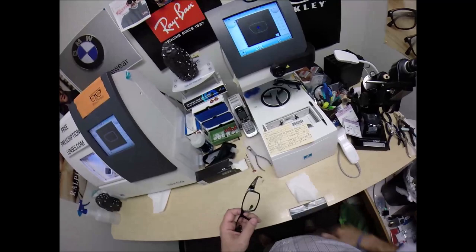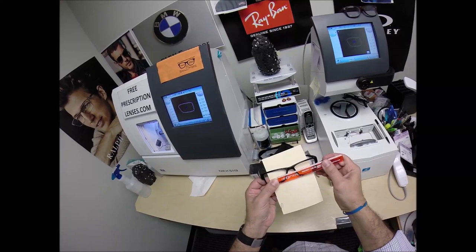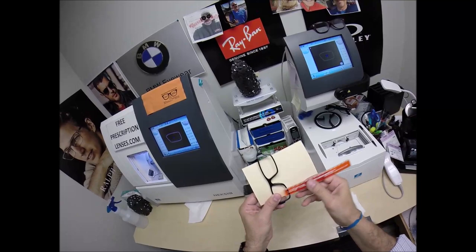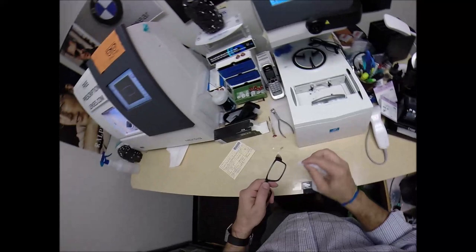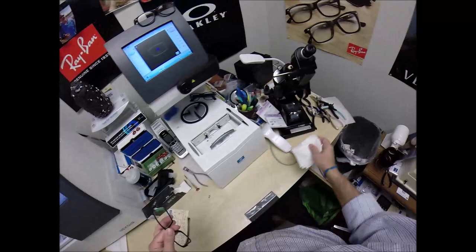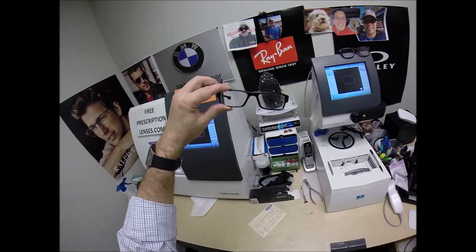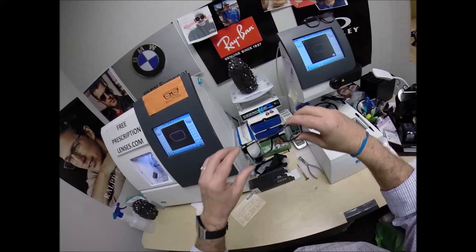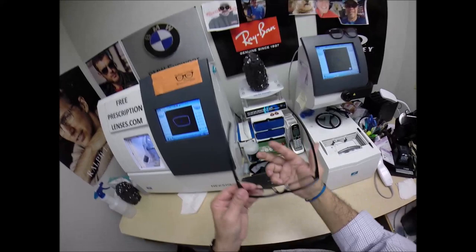I know people have to charge tax on the internet now. I am in North Carolina, North Carolina does not charge tax on medical devices so I will always be tax free for you guys. This purchase is just over $200 which would be about just over $15 to $17 of tax if I were to tax him but I ain't gonna. But when you get these in the mail there is a small chance that these could fit too loose or too tight however, hang on let me check the PD, I'm getting ahead of myself. Slow down, you move too fast, you got to make the whole day last. So when I hold up the PD stick to the left eye dot we're getting 60. Let me check the optical center height. Man that kid is good. Wow, I can't believe he did that on the first pair of glasses he's ever made in his life.